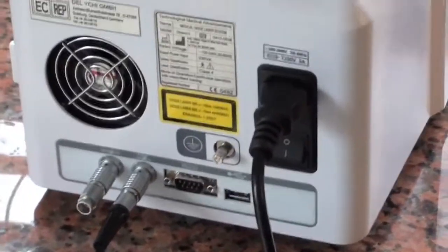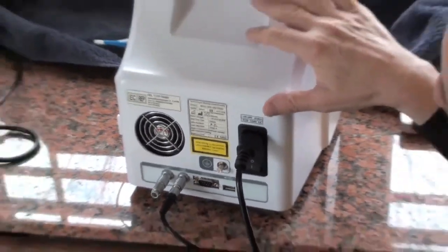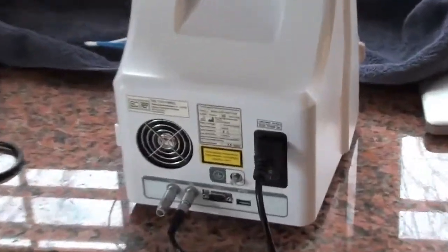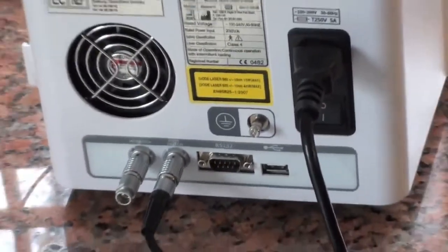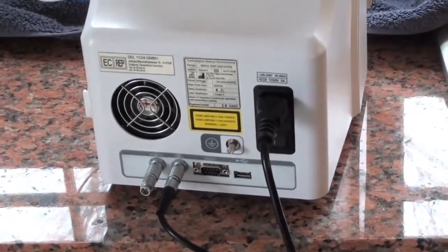Okay, hi. This is Dr. Zuckerman. In front of us we have the back of the DiaWave 15 high energy laser. It comes in two models, a 10 watt and a 15 watt.